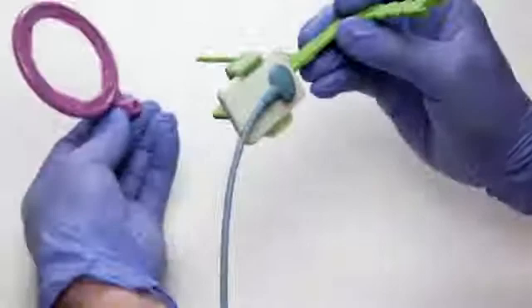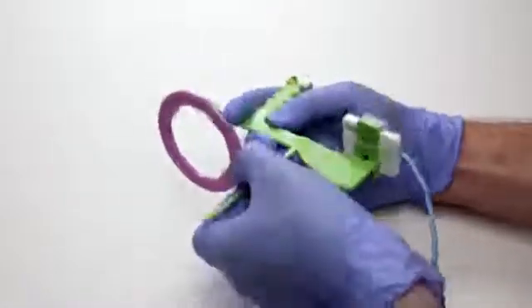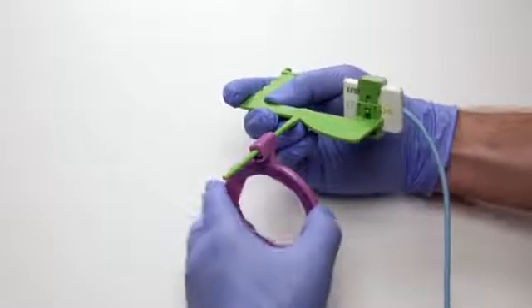Finally, place your Universal aiming ring on the stem of the positioner. The aiming ring has eight locking positions for you to choose from.